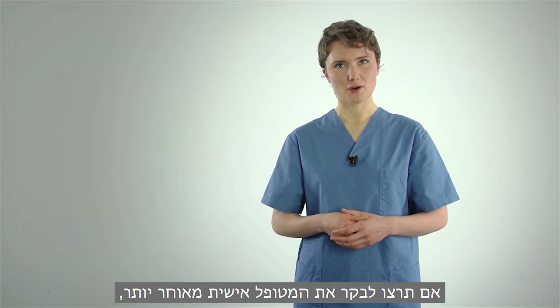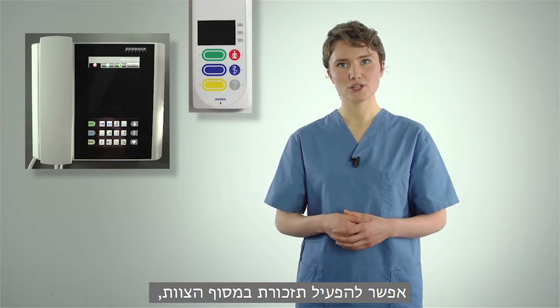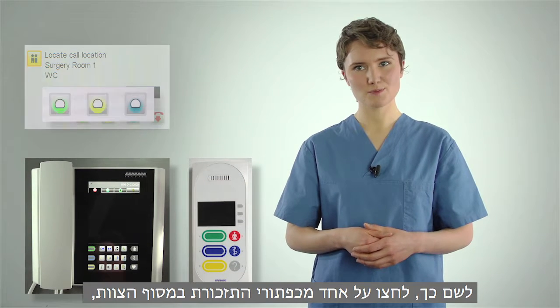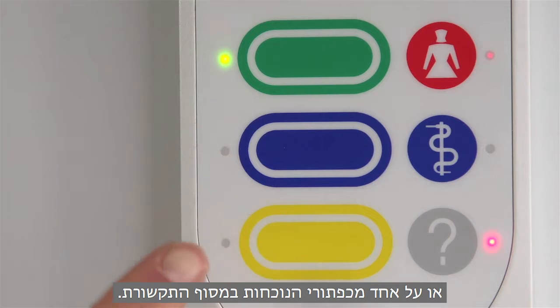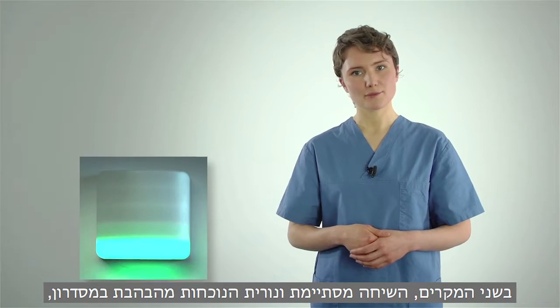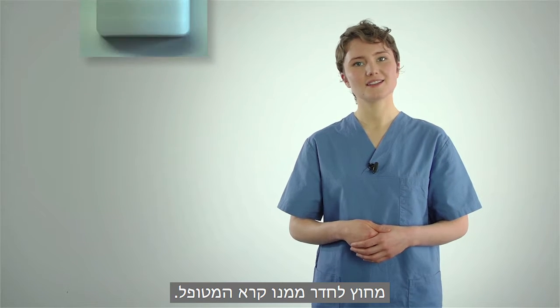If you want to see the patient in person later, you can activate the reminder on the staff terminal or on the communications terminal in the room. To do so, just press one of the reminder buttons on the staff terminal or one of the presence buttons on the communications terminal. In both cases, the call is ended, and the presence light flashes in the hallway outside the room from which the patient called.